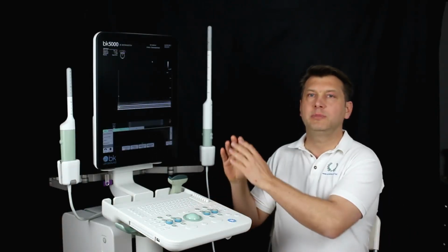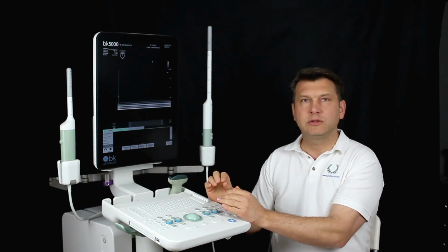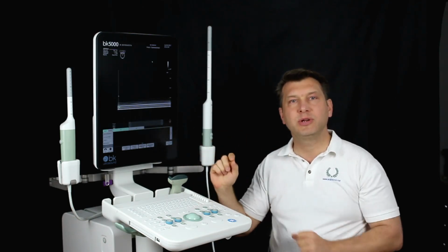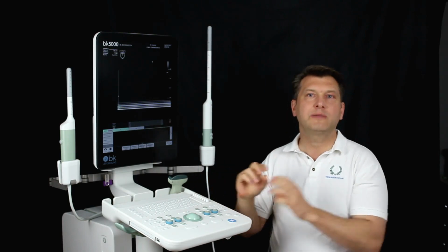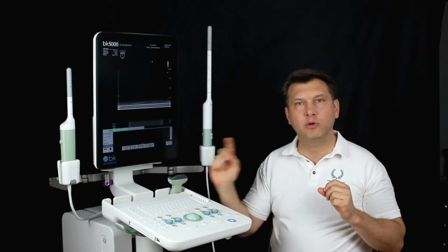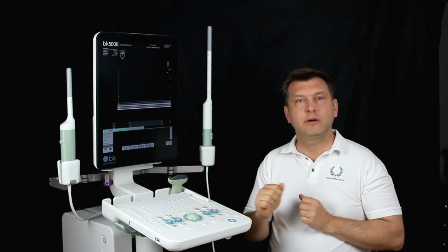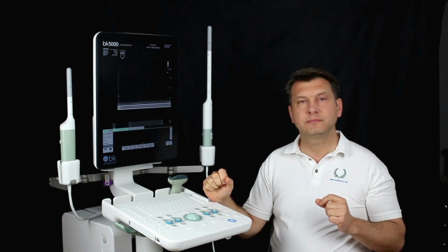Now another menu appears with frequency, dynamic range, resolution, and so on. In these scanners, these parameters have been greatly simplified and fully automated. However, I will explain why these settings are so important. We start with frequency, depth, width, resolution, distance, and acquisition time.